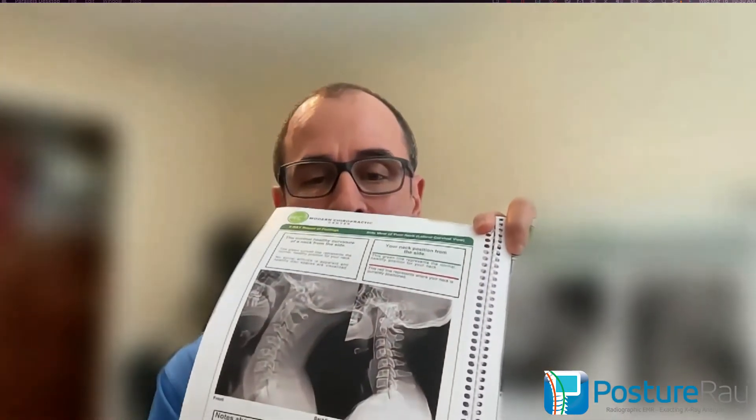All these reports are PDFs that can be put into any note system and branded with your logos and your colors. You create these reports that the patient takes home at the time of the report of findings, showing their X-rays compared to normal — something unique and different about your practice that shows the evidence of their spinal alignment and implications. We also have reports you can submit to third parties, which become your radiographic report. PostureRay makes it simple to objectively document all the angles, rotations, and translations of all the vertebral movements studied in CBP and CBP Nonprofit, and you can also put in your own pathological notes.